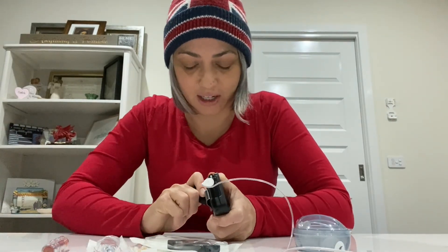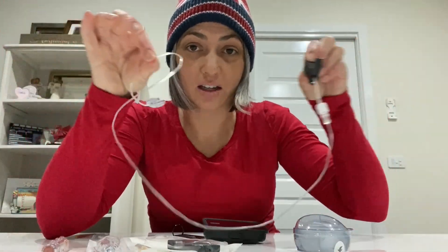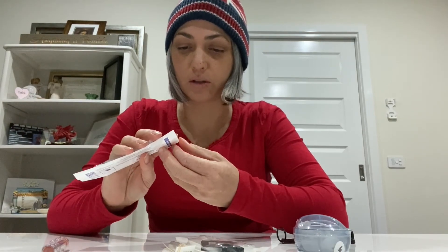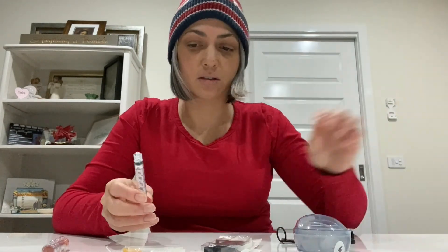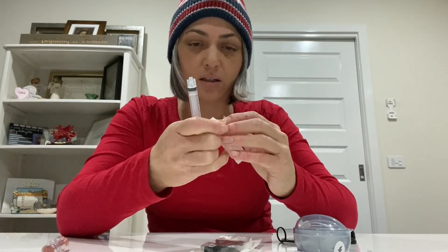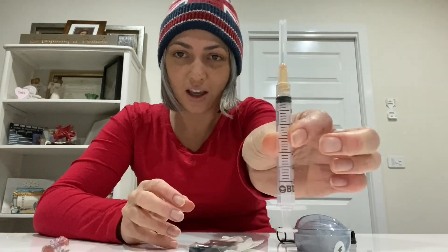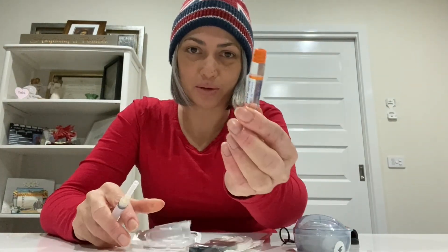I have moisturizer on my hands, which doesn't help. That's the old cartridge and old line — that can literally go in the bin. I'll open the syringe now. It comes in two parts, just for safety. By the way, I've already washed my hands, though during this whole COVID thing I've been washing them so much my hands are getting dry.